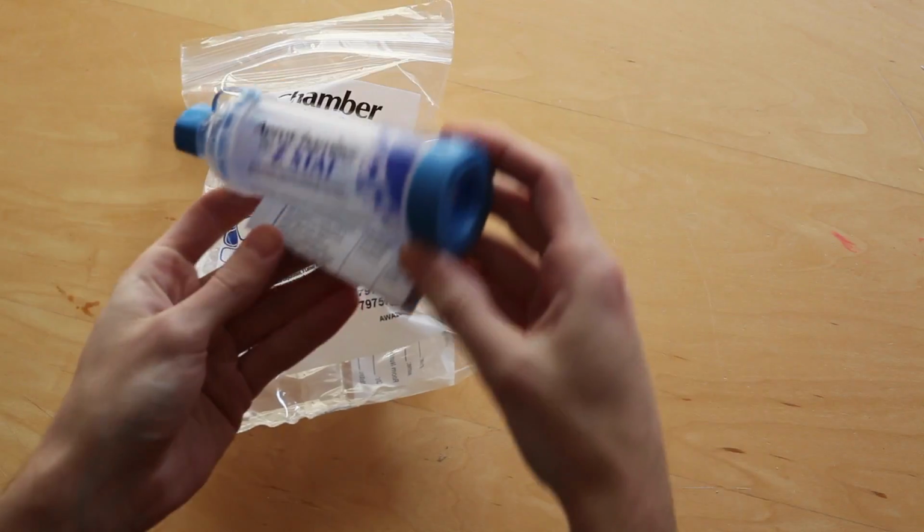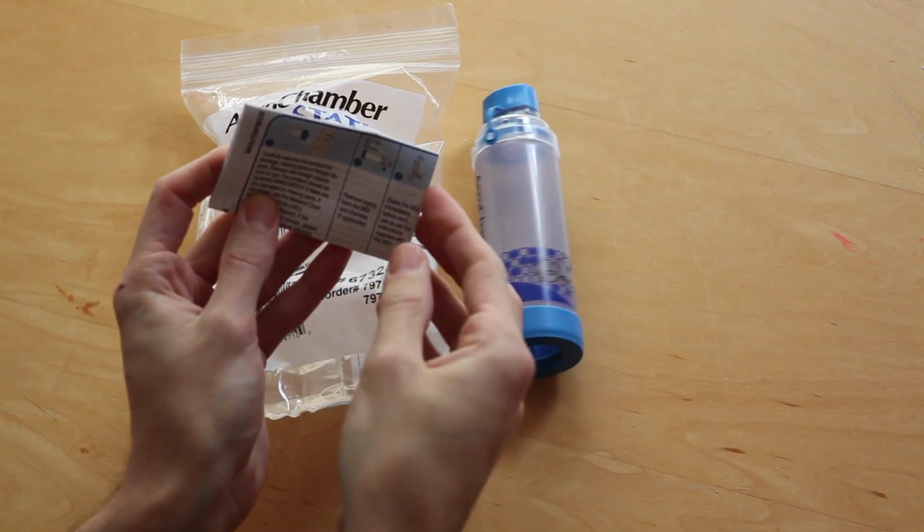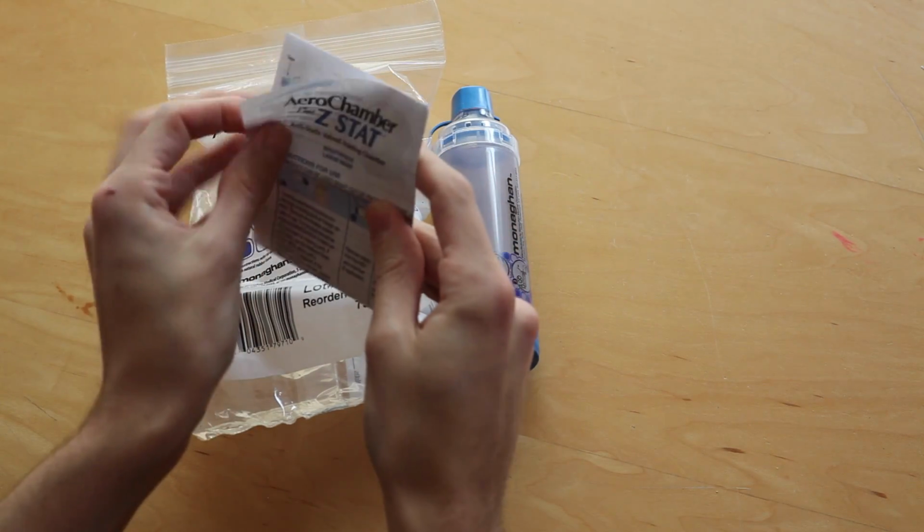And just like with any medication, they shouldn't be using without parental supervision, even if the patient seems comfortable and competent using on their own. And if they ever have any questions, they can feel free to refer to the instruction manual inside most of these devices.